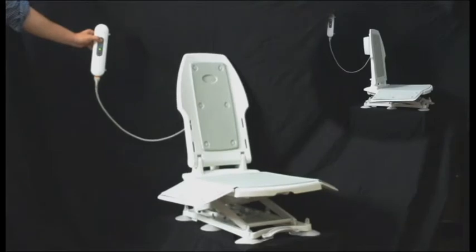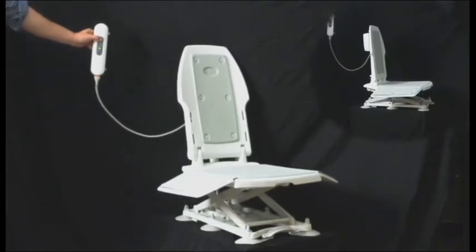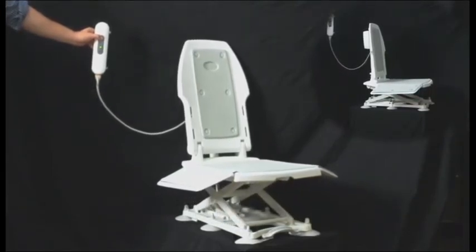Before using an Ameriglide bath lift with a person, be sure to become familiar with its controls by placing it in a bath and testing its operation.